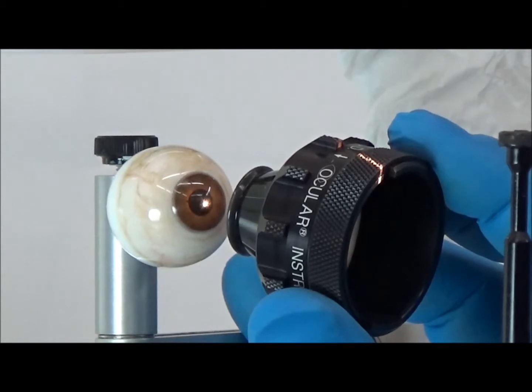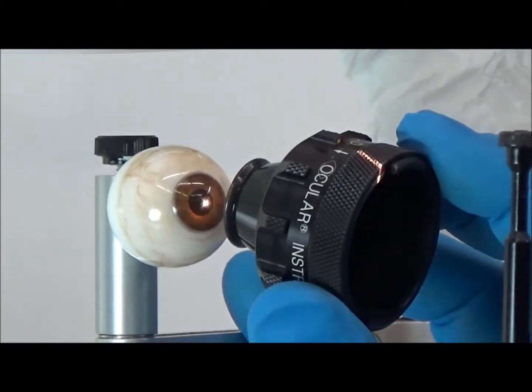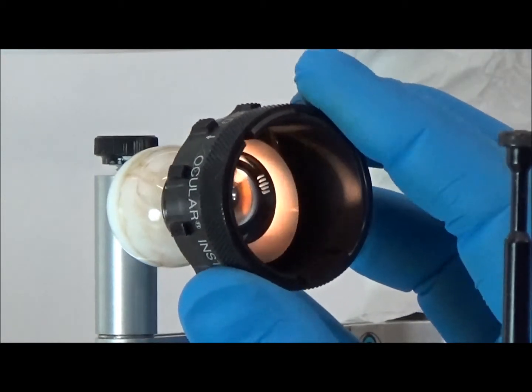Note the lens can be held between the thumb and the first finger during use. When the magnets are engaged, the lens can be manipulated in the usual manner.